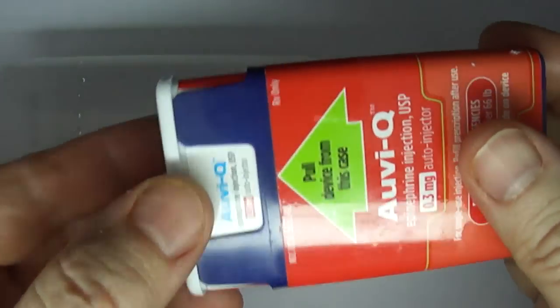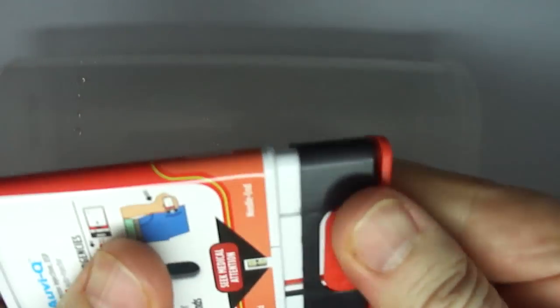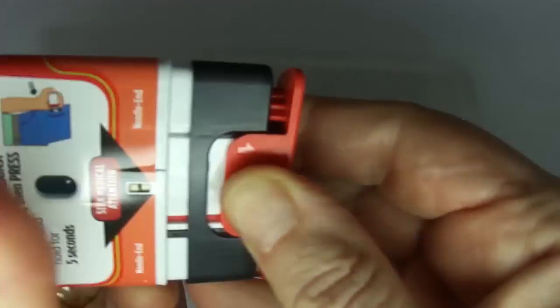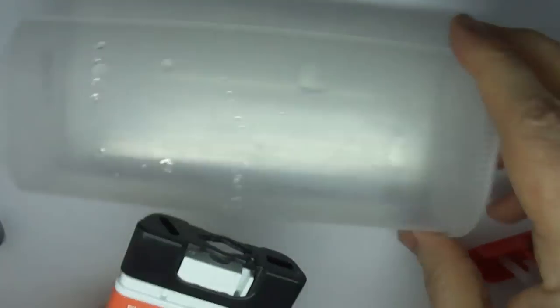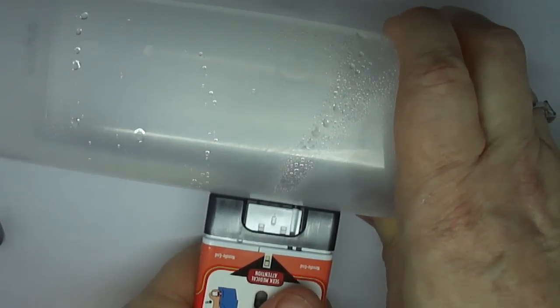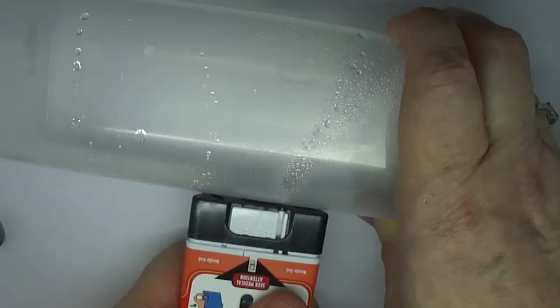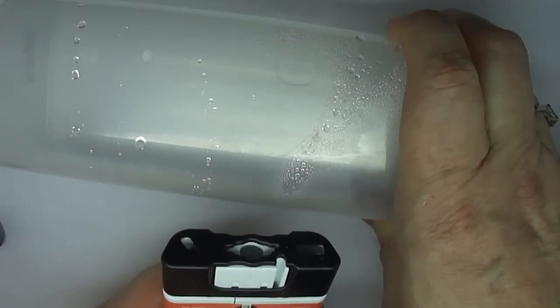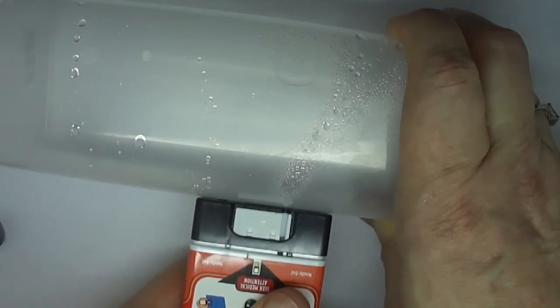AviQ device. If you are ready to use, to inject, place black end against outer thigh, then press five, four, three, two, one. Injection complete.